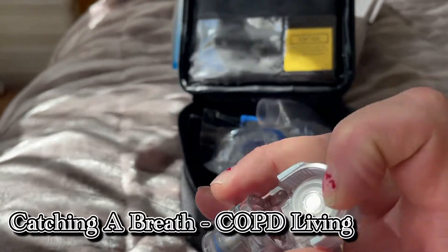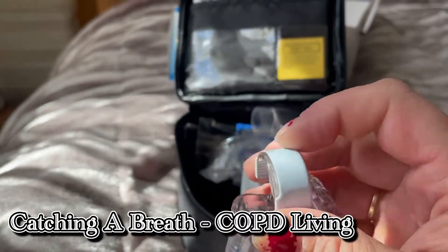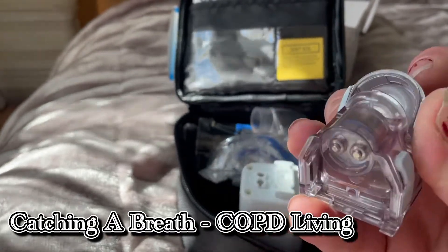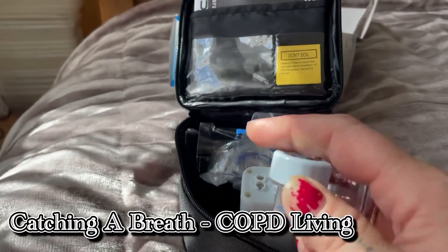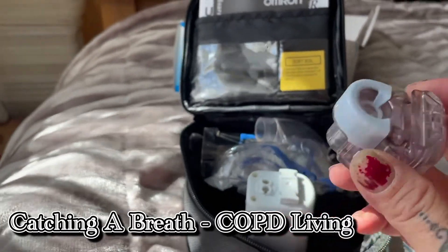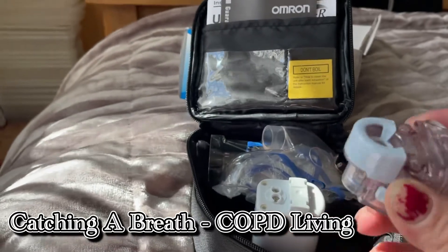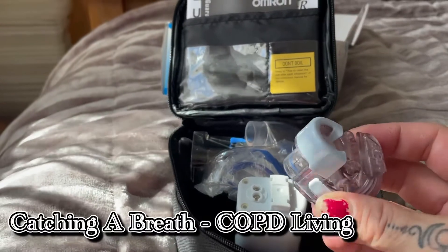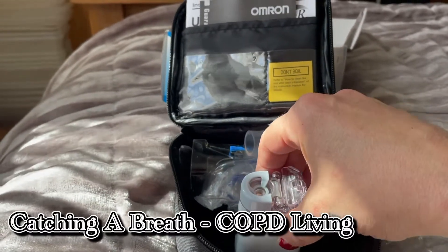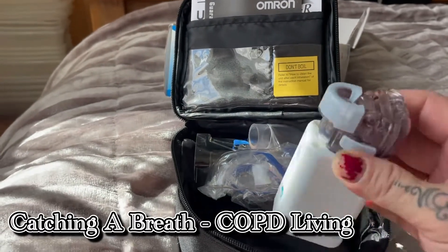You can buy all the parts for this little plastic bit. Because I was heavy handed when I first owned these — you clean them with cotton wool buds, and if you press down on that little silver bit in there too hard, it pushes through and tears the rubber. They cost about 20-30 quid back in the day just to buy that little unit. So just as long as you're gentle with it, it will last you years — this one I've got now has lasted me well over 10 years. Sorry, I'm still really shaky and not feeling good today.